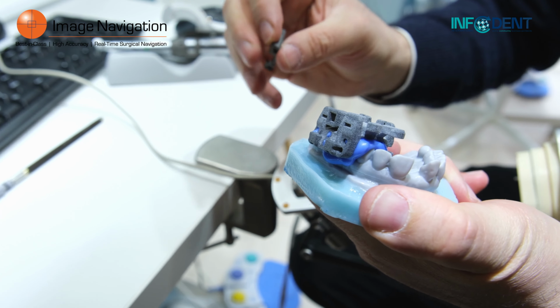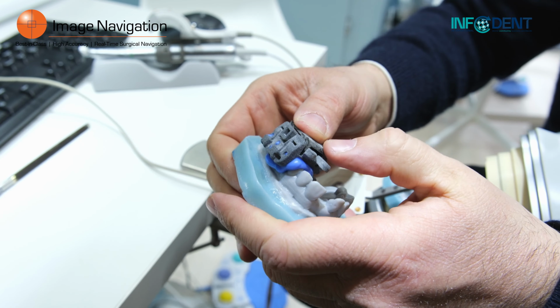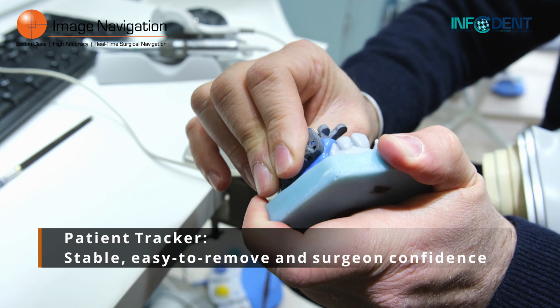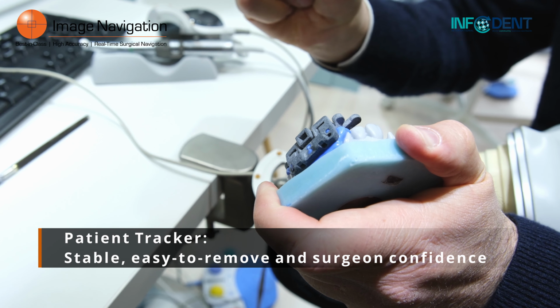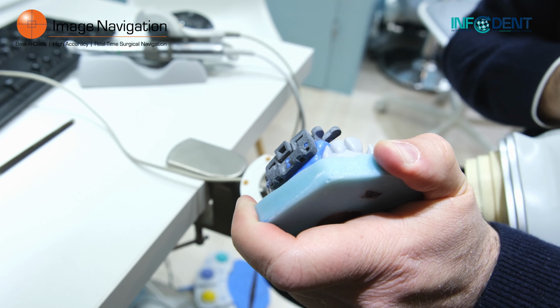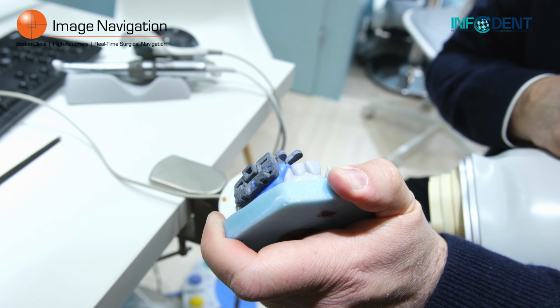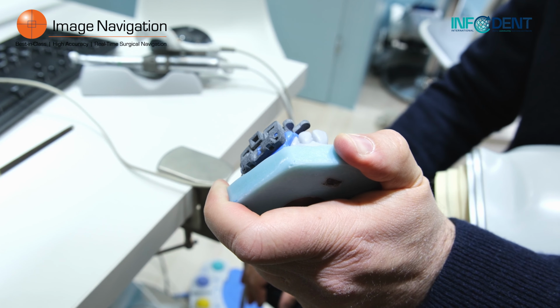We came up with this amazing idea to lock it by using a wedge. I put that on top of my impression tray, and at this point, this is completely stable. So it's very stable, very easy to remove without any risk of breaking anything in the patient's mouth, and also very reassuring for the surgeon to be able to operate with the IGI since he knows that it's not moving at all during surgery. So it allows us to keep our accuracy as stated, at less than 1 millimeter.